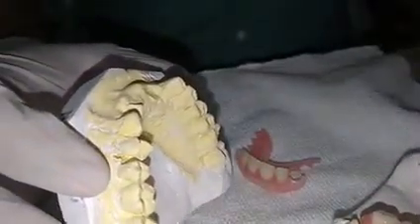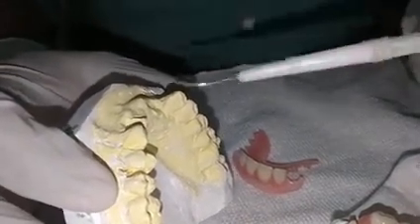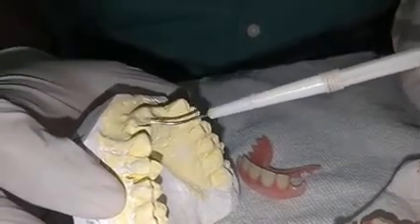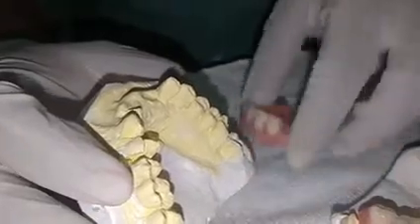The patient had a chipped upper lateral tooth, and these are root stems. They were also missing this anterior tooth, so I have made a four-unit partial for the upper region.